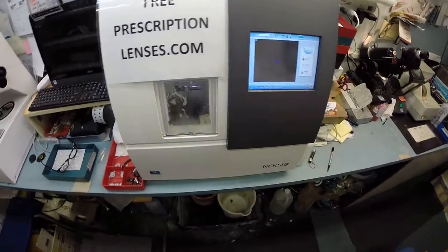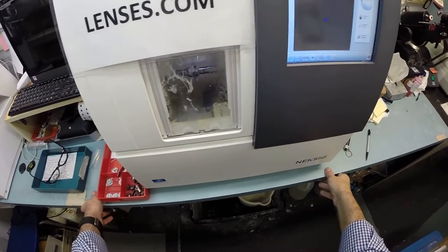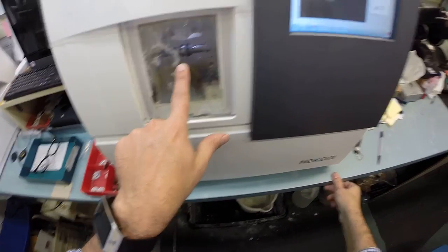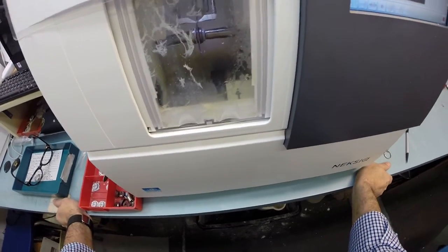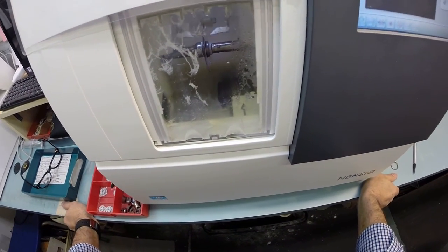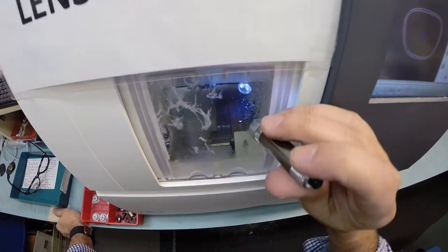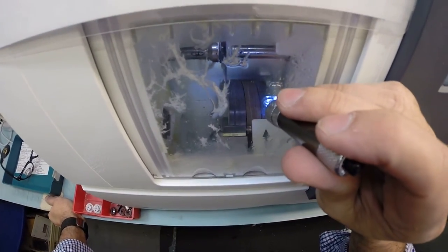I recommend everyone go out and get one. Put it on your kitchen counter. As it traces again, you will see the shape of the left lens. But yeah, put this on your kitchen counter or next to your screen printing equipment. You won't need me to cut your lenses anymore.